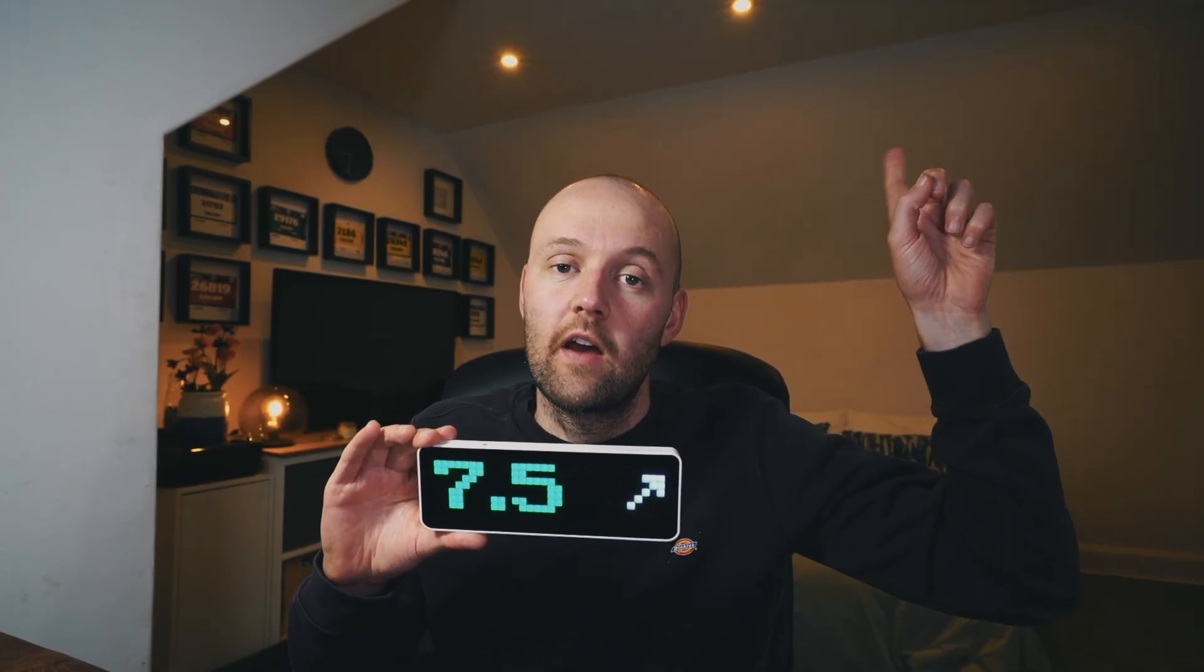This is a quick video on how you can connect your Nightscout, in my case it's Nightscout Pro, to the Nightscout clock. This is the Ulanzi TC001. If you're interested in this clock I do have an entire video about how to set it up, but for now we're just going to learn how to connect Nightscout to this.